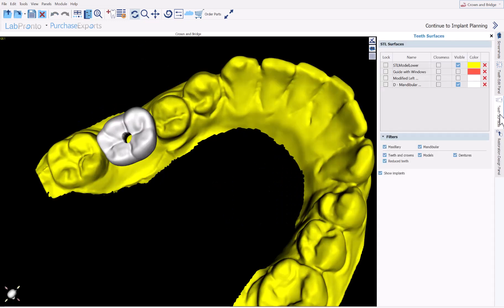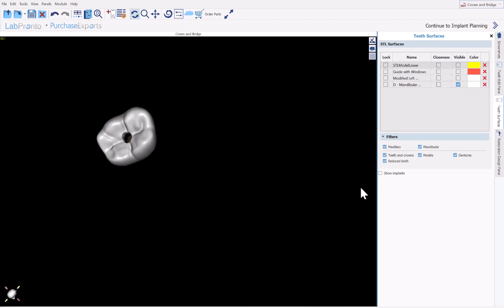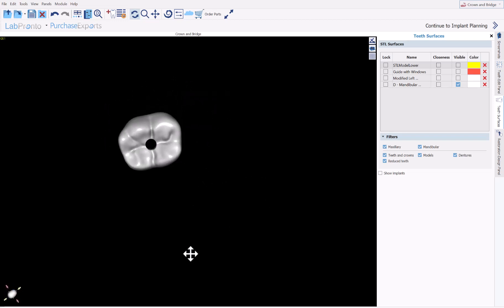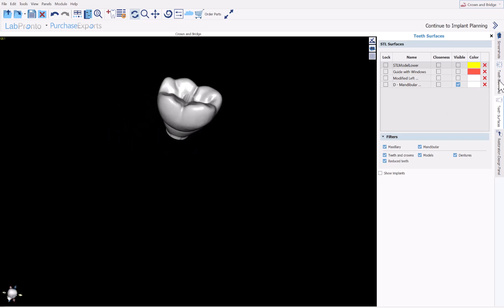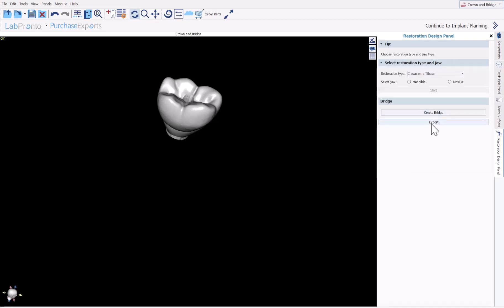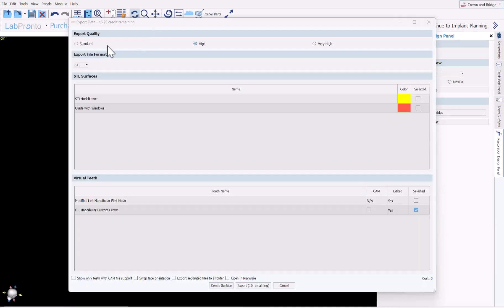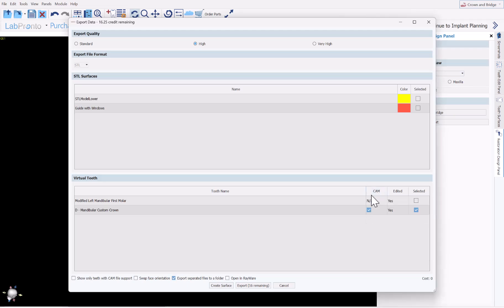If we switch over to Surfaces, we can see the crown that has been designed. This crown can be exported to an STL file with or without the XML file for milling. Simply click on the Export button — you have the options to export STL, and if you want to export the CAM mill file, make sure the checkbox under CAM is selected, then click Export. As I mentioned, there's no fee for designing or exporting the crown, so you could generate crowns all day long and export them at completely no cost.